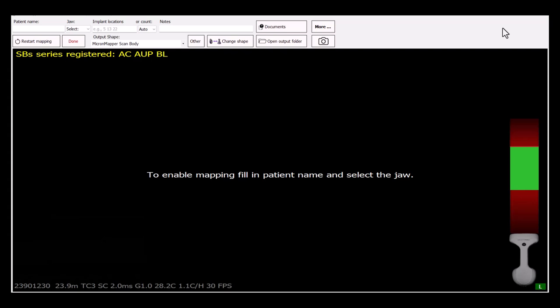Hello, let me introduce you to the new feature which is called FitCheck. This feature allows you to check the fit of the fabricated prosthesis by comparing the photogrammetry scan to the actual interfaces present on the restoration.